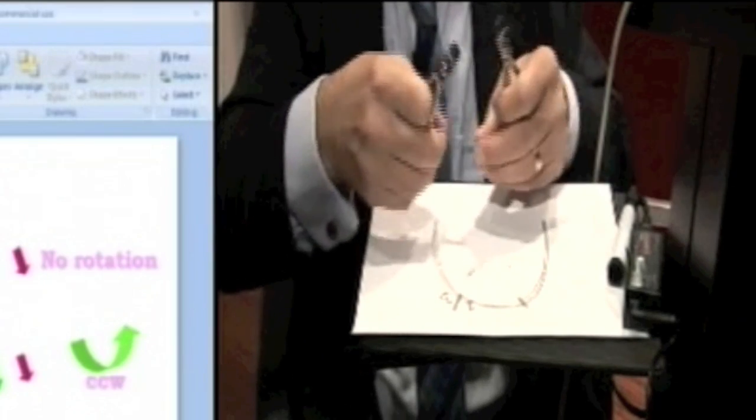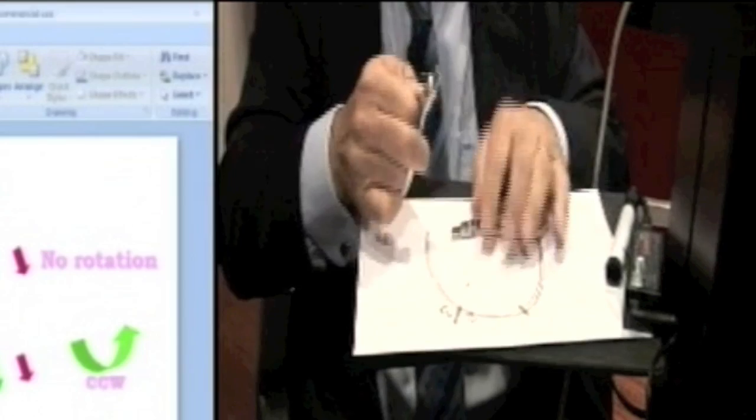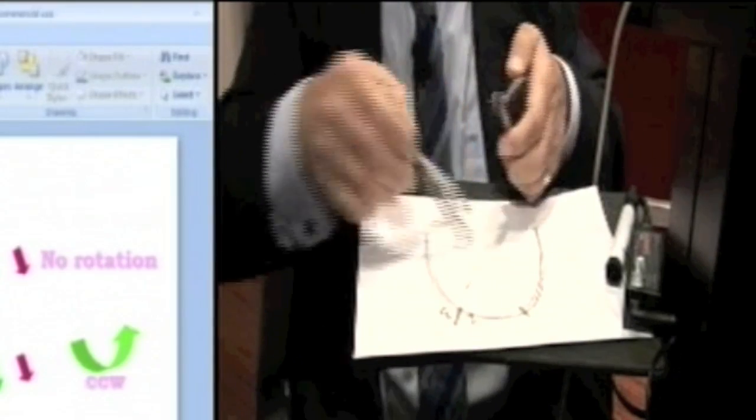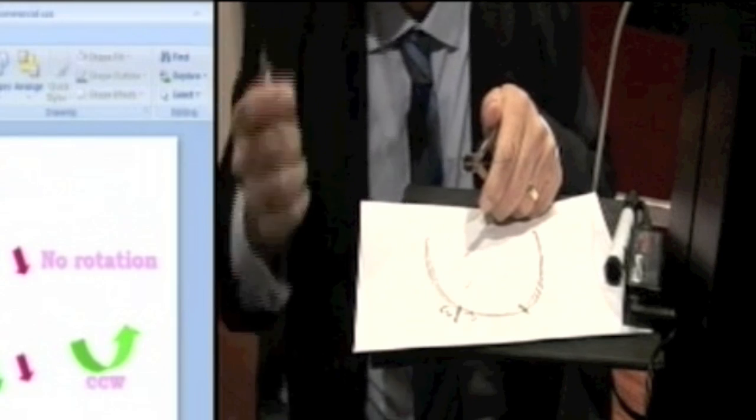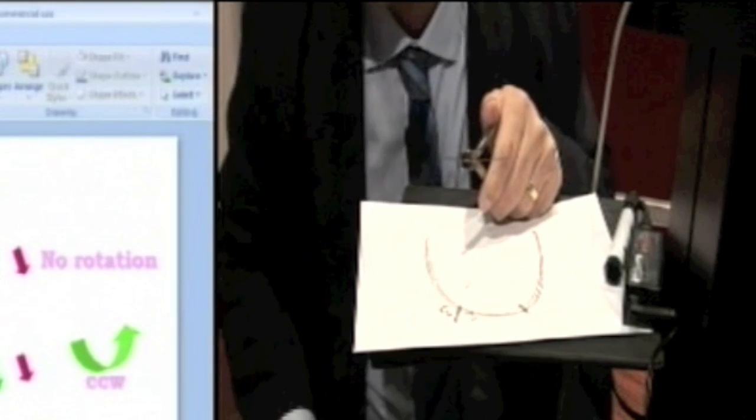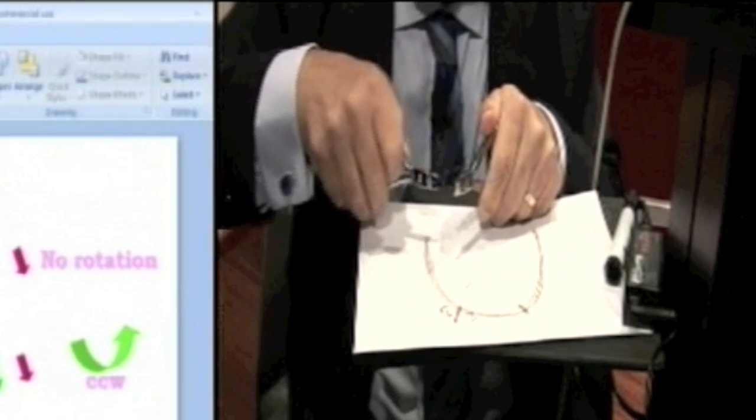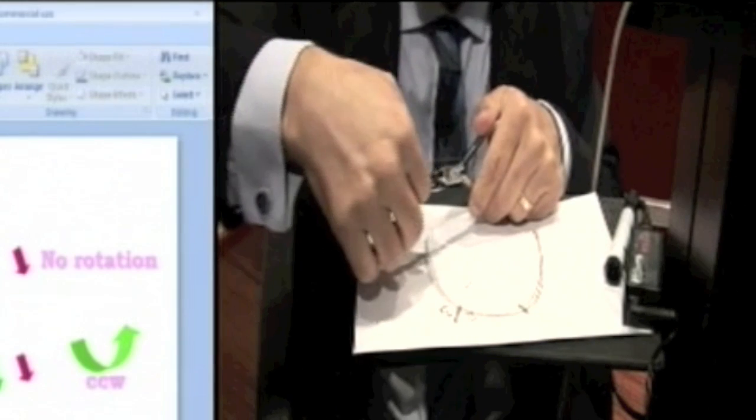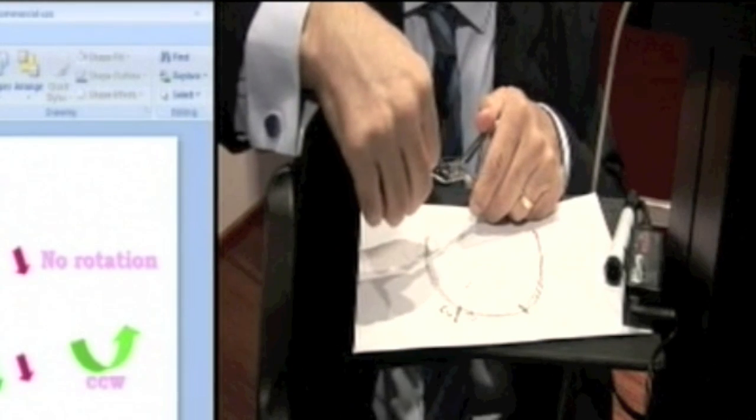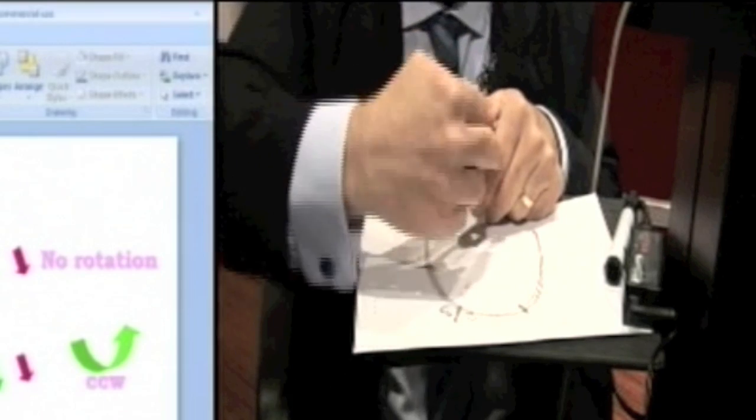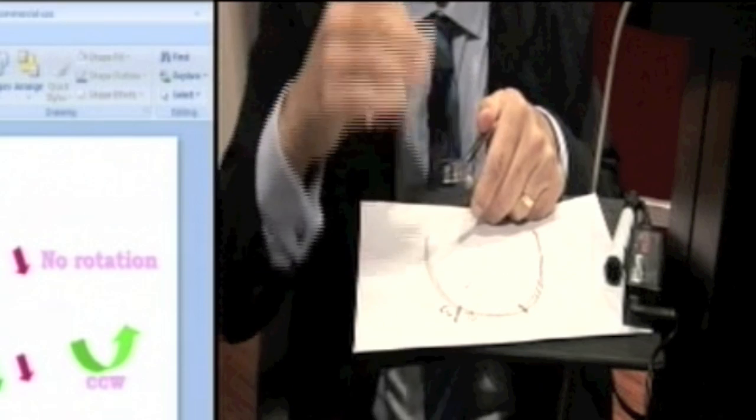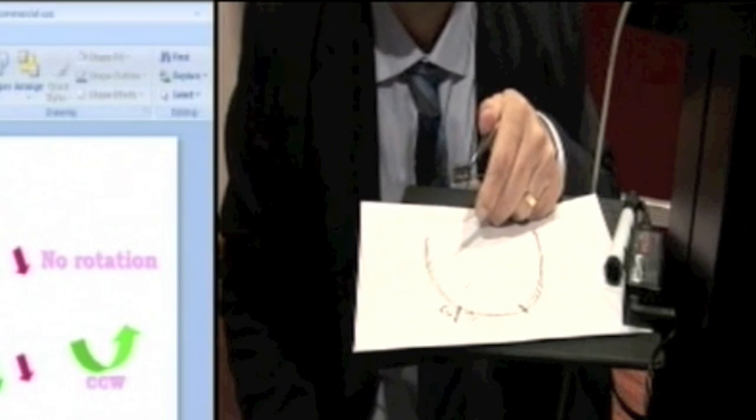You then come to the other side of the goalpost, which is the side now you want to take the torque out. This is the biggest problem I see doctors do when they first do it. They go zero, they go 20, and then they put in another 20 degrees of torque. So now their buccal segment on the left is 40 with the goalpost leaning in, and they're going to end up with an occlusal cant.